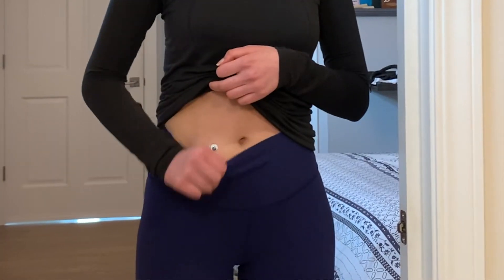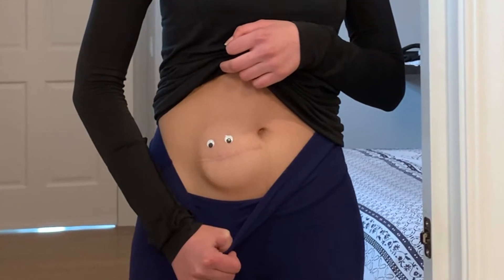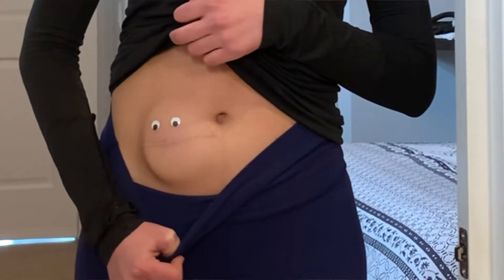Hi, my name's Emily and in this video I'm going to introduce you all to my baclofen pump. Her name's Little Debbie after the Snack Cake Company. I have a type of motor neuron disease that causes upper and lower body spasticity. Spasticity is basically increased tone in the muscles which causes jerky movements like this. The baclofen pump is one way I manage lower body spasticity.